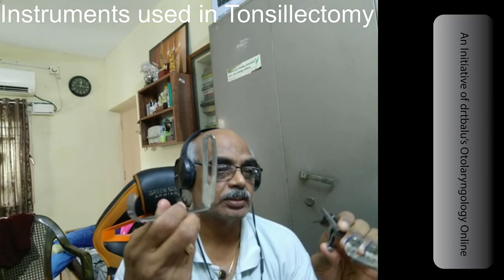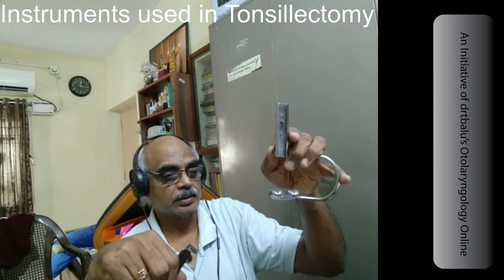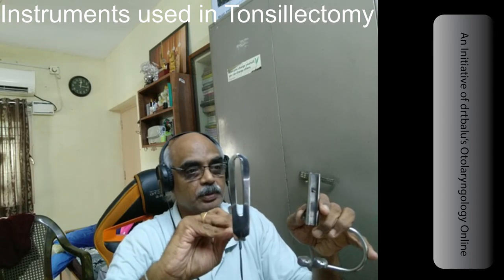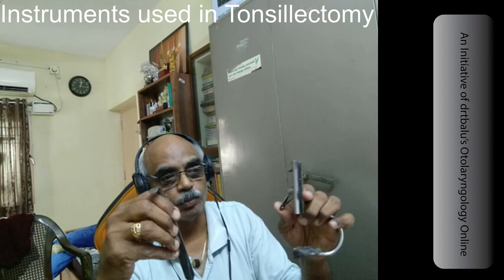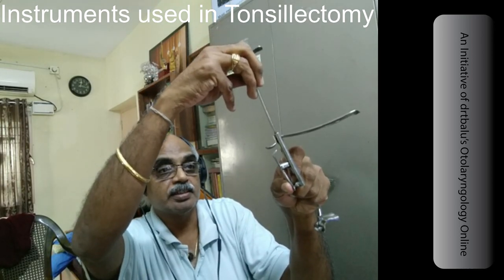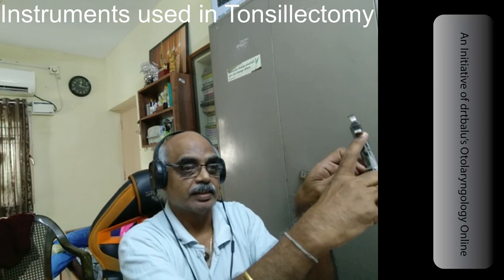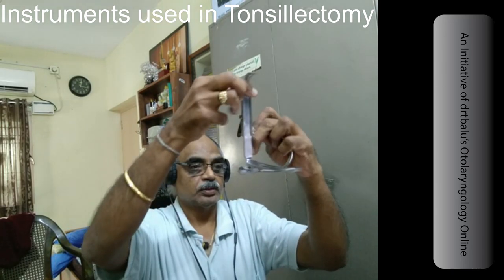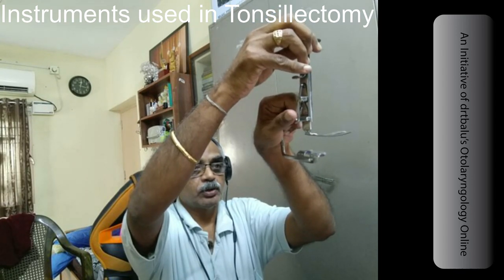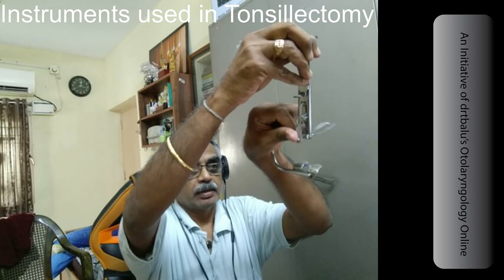This Boyle Davis mouth gag with Doughty's modified tongue blade is two instruments put into one: the D-shaped Davis mouth gag and the Boyle's tongue blade with the Doughty's slit modification. To merge them, you compress the clamp, drop the tongue blade into the slot, and release the clamp — it will anchor the tongue blade in the desired position. When you attempt to open the mouth, drag it to the desired level and allow the clamp to rest in that slot, arresting the movement of the tongue blade so it gets locked.